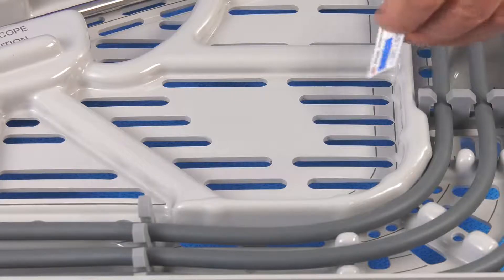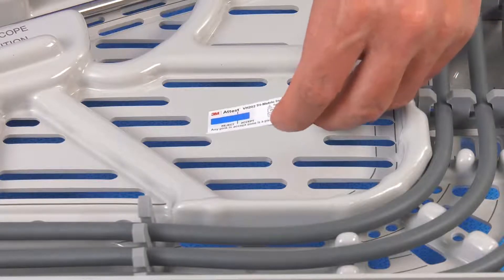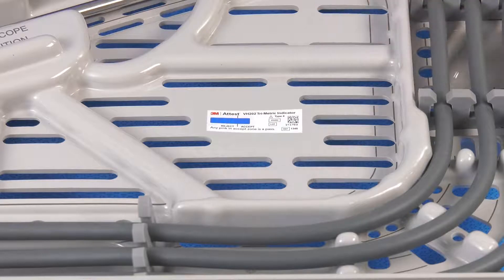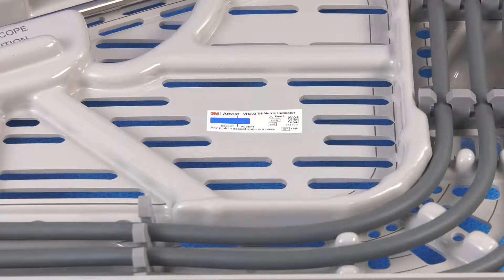Place the CI in the area of the pack, tray, or containment device that creates the greatest challenge to sterilant penetration.